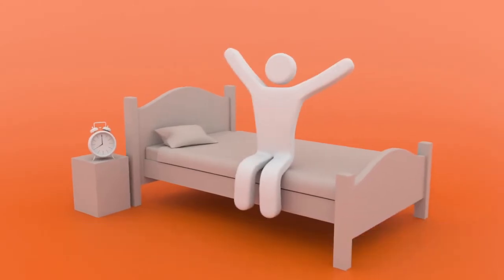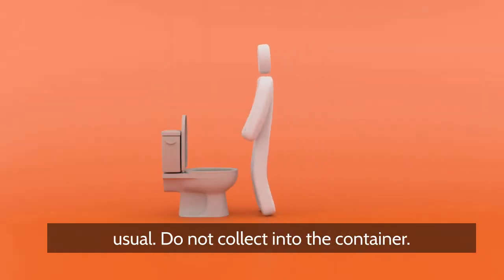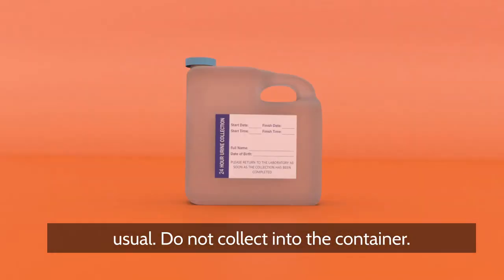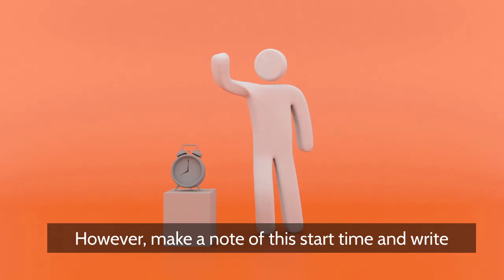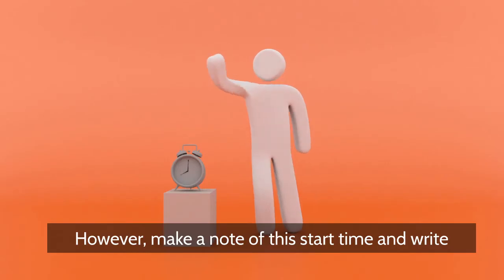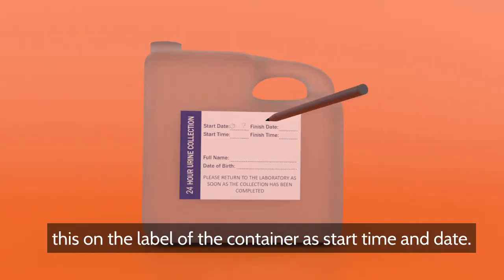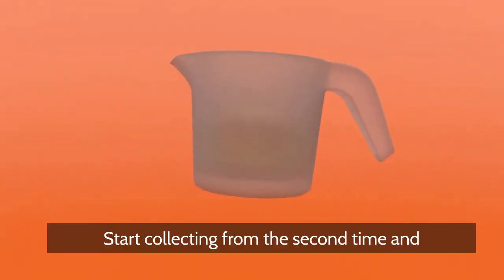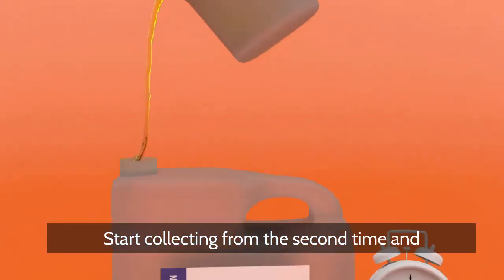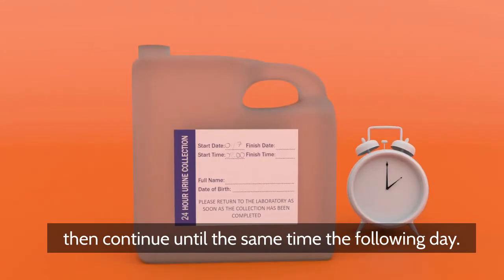When you get up in the morning, empty your bladder into the toilet as usual. Do not collect into the container. However, make a note of this start time and write this on the label of the container as start time and date. Start collecting from the second time and then continue until the same time the following day.